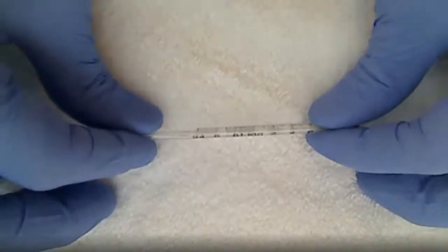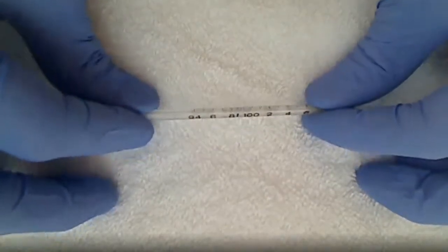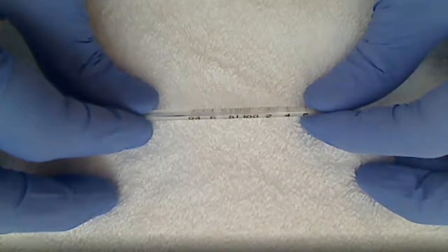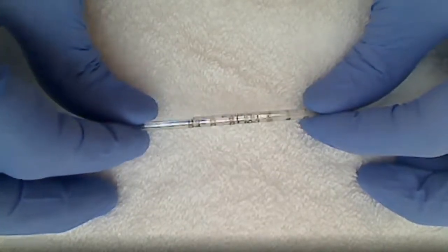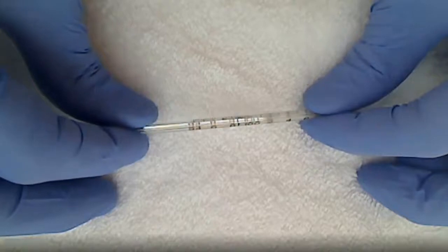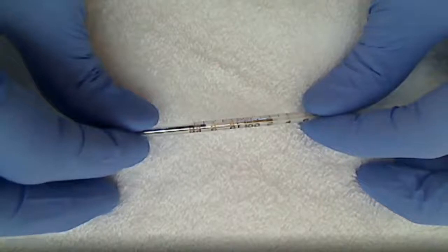Let me see if I can get this in a little bit better area, sun's kind of killing me. You can see that silver line. So that silver line that showed up, it's at 102.4.